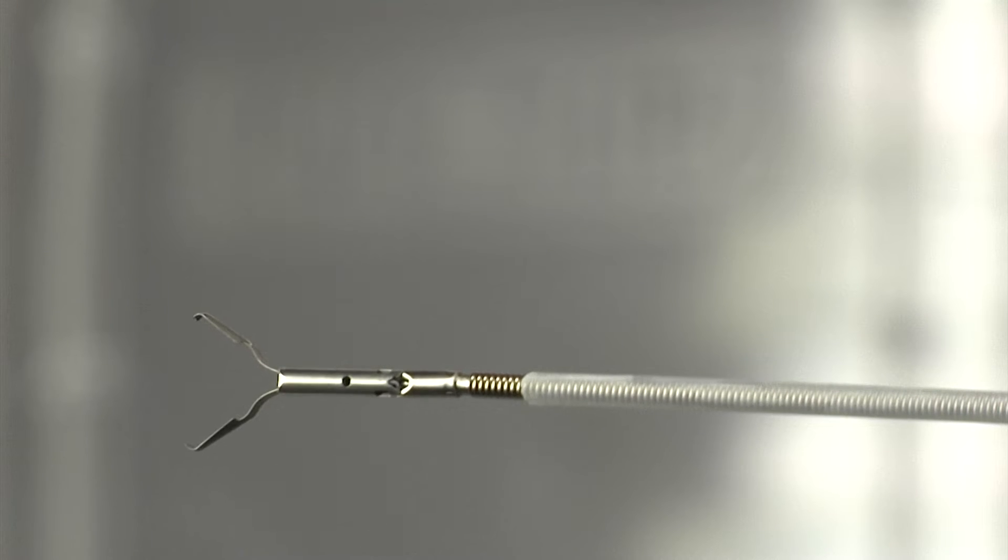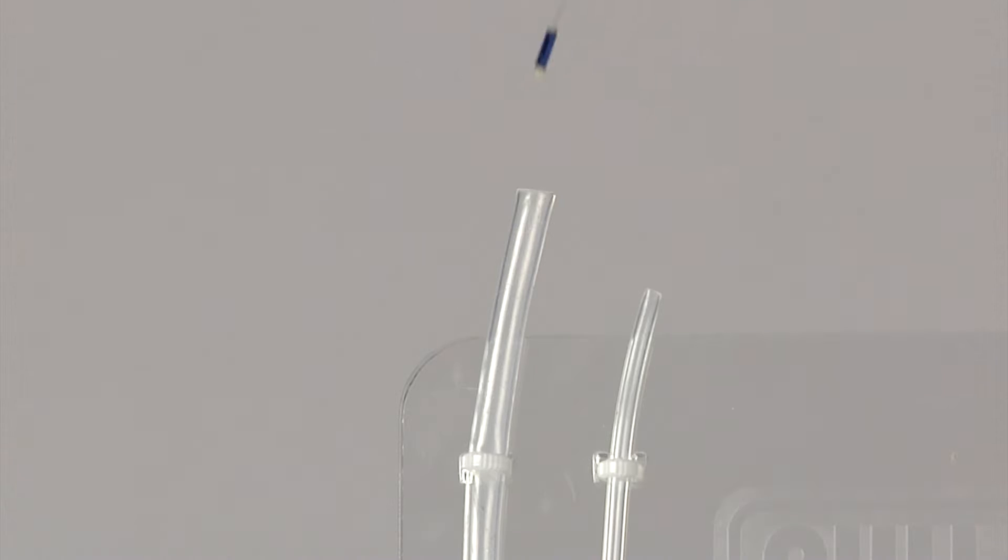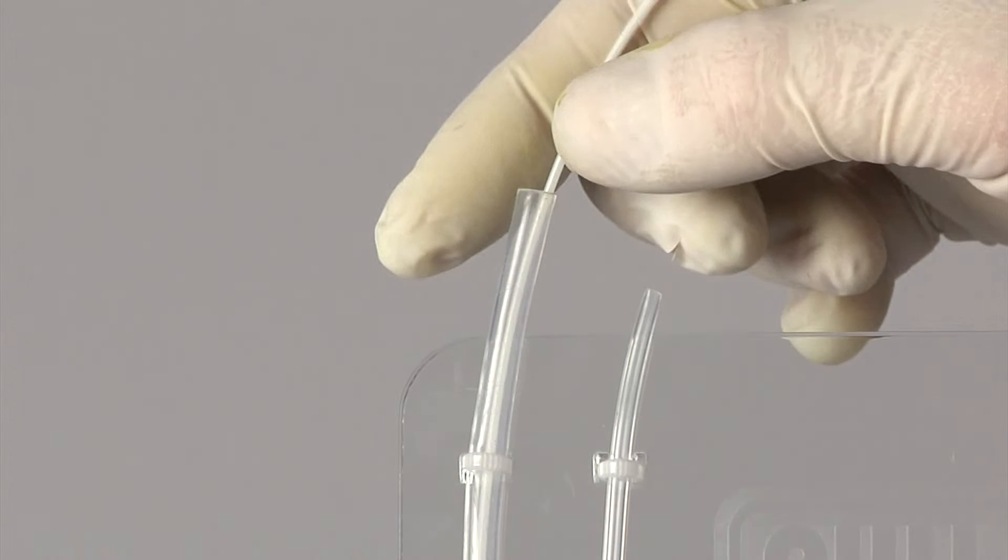This video demonstrates how effective the pull through is at removing foreign objects compared to other channel cleaning devices. Therapeutic devices such as stents, loops, and clips can become lodged in scope channels by being sucked in or through accidental deployment.